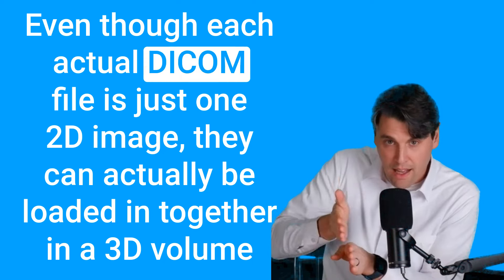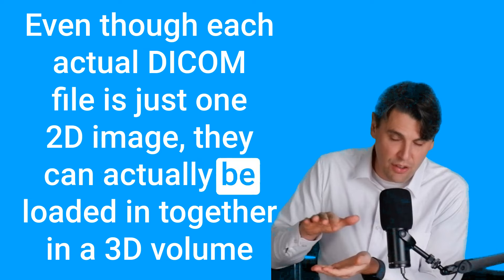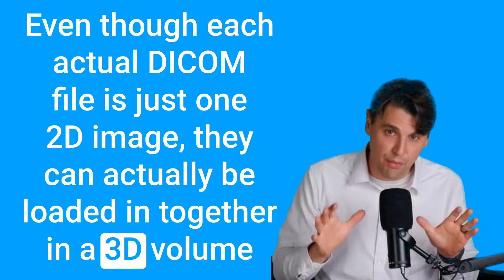Now, these images can be 3D images. The DICOMs are actually saved and transferred as just 2D images. And they all get related to one another by that metadata. Even though each actual DICOM file is just one 2D image, they can actually be loaded in together in a 3D volume. It's very common for browsers nowadays to actually interact well with the 3D images that originally started as 2D DICOM images, but putting them in based on the metadata that tells you basically how thick each of the slices should be and where they're positioned with respect to one another.